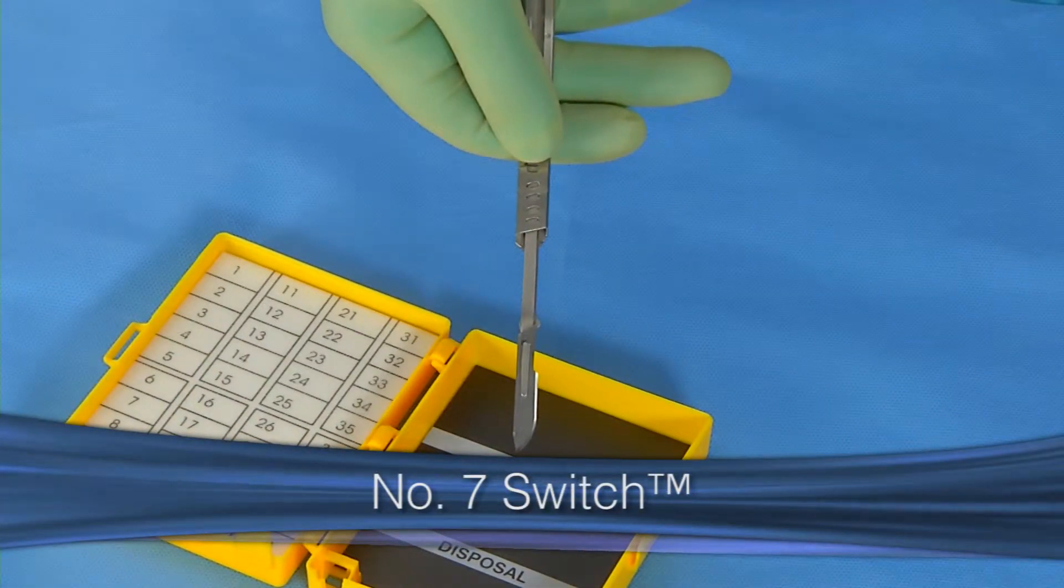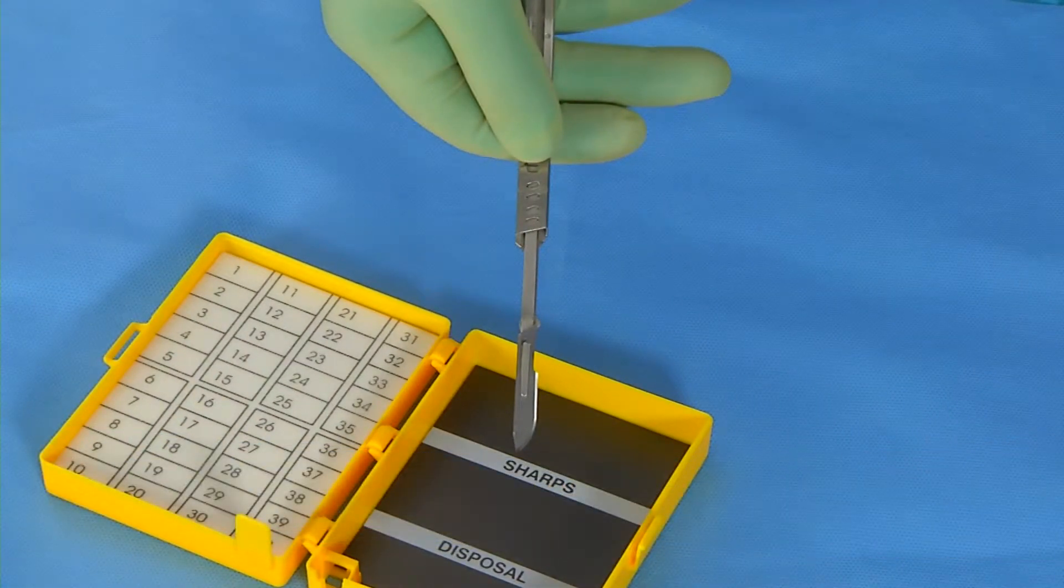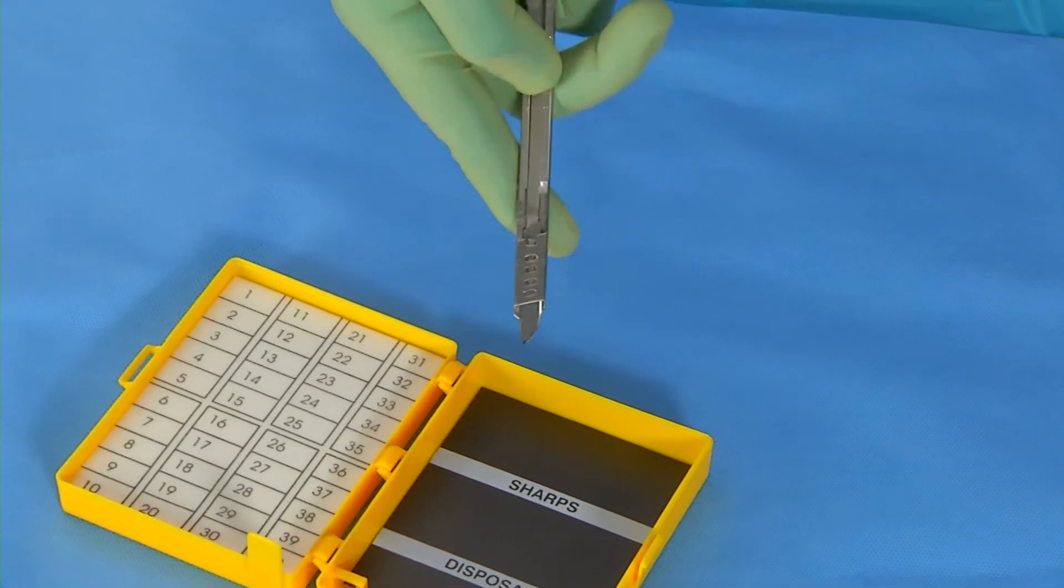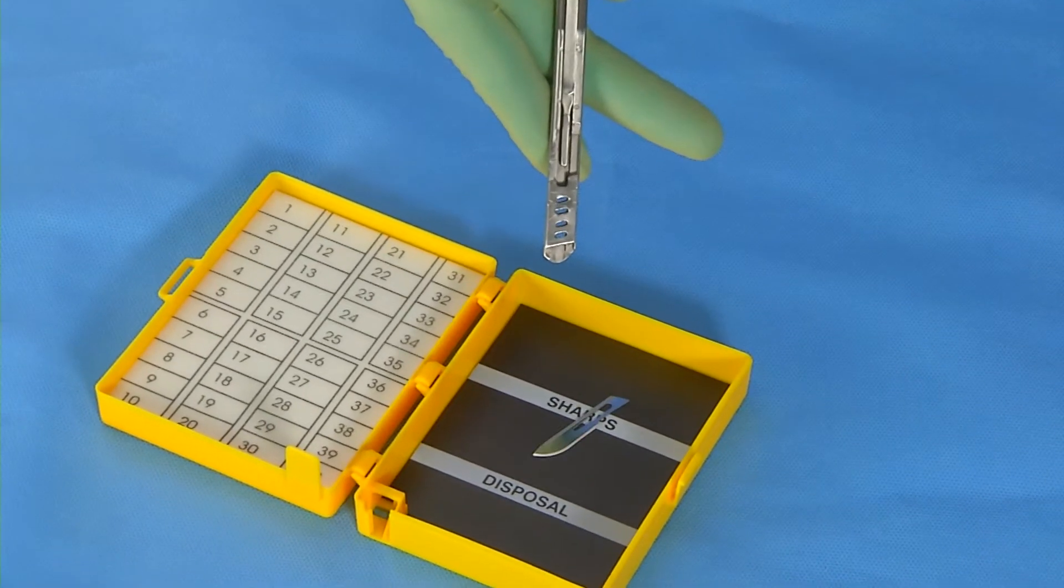And finally, the number seven safety scalpel, the only number seven safety scalpel available for conventional blades. Press down on the side button to pull back the blade until the blade releases into the sharps disposal.